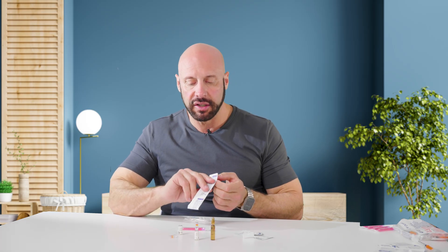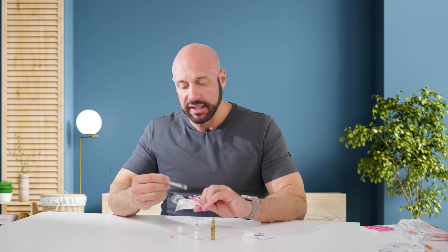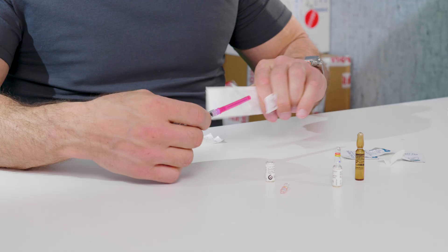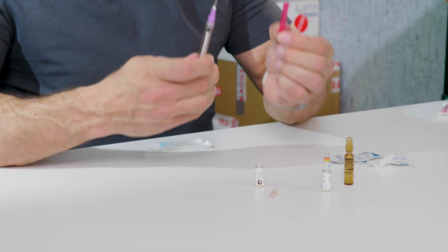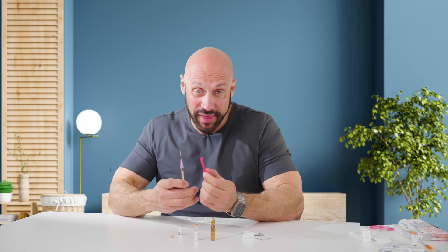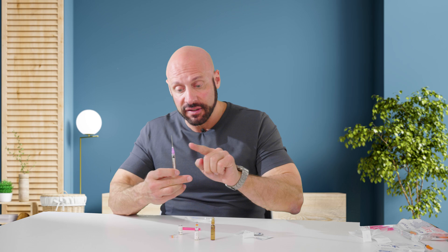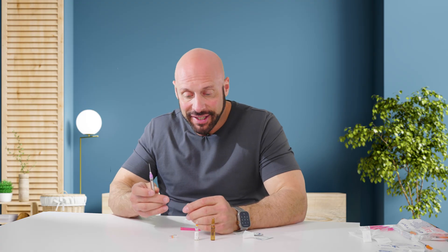So if you're using a 1ml syringe, that's what I'll demonstrate. You simply open it, open up the 18 gauge filter needle. This is a luer lock — that means it screws in. So I'm going to screw the syringe into the filter needle. I can remove the cap. You never ever want to inject with this — this is only for filling your syringe. It's 18 gauge because it allows for quicker aspiration, allowing you to quickly remove the content of your ampule. These are called ampules, not vials.